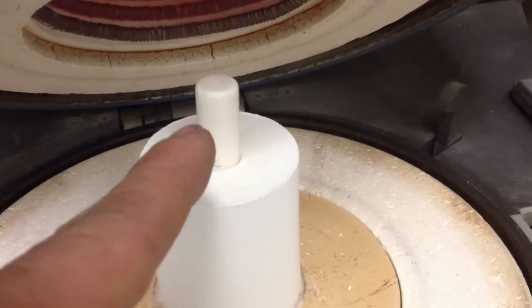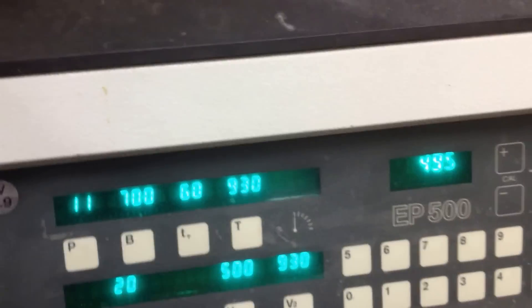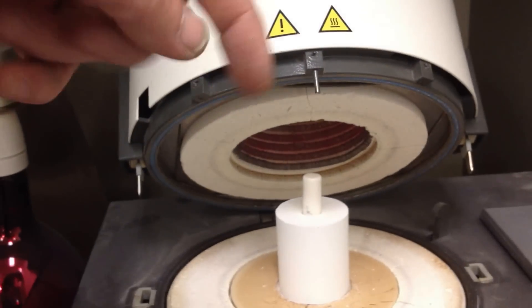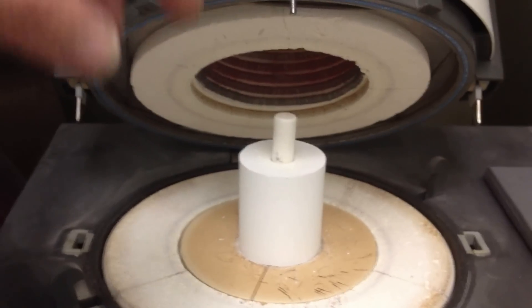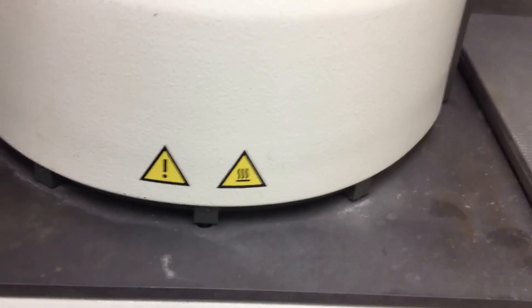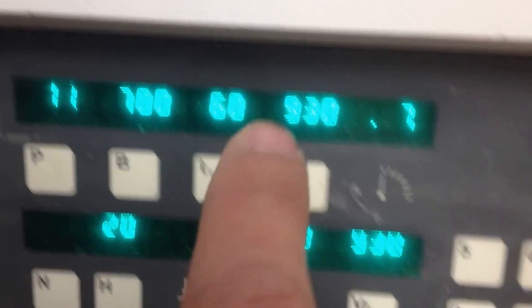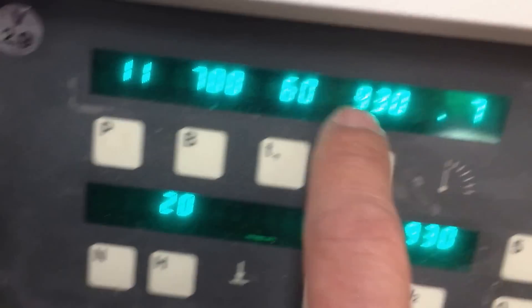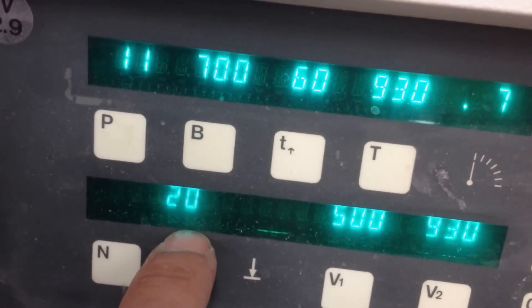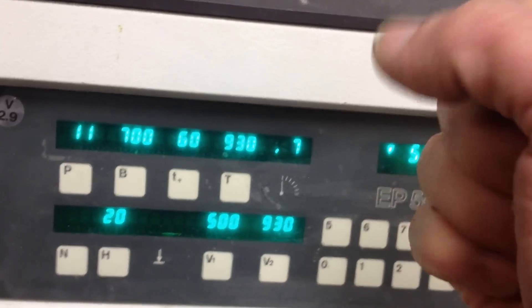The plunger on top of the machine coincides with the top of the plunger here. When the glass is molten in a vacuum environment at the appropriate temperature, the furnace will activate the plunging mechanism to come down at a pressure of 5 bar, and that'll inject the ceramic into the mold. The coefficient of thermal expansion of the mold is matched to the ceramic, so it won't crack when it's cooling. The furnace is loaded, push the start button. I've set all my parameters — this particular glass will melt at 930 degrees. The furnace will preheat the material for 20 minutes, keeping it at that temperature in a vacuum, so it's nice and molten, and then proceed with the injection procedure.